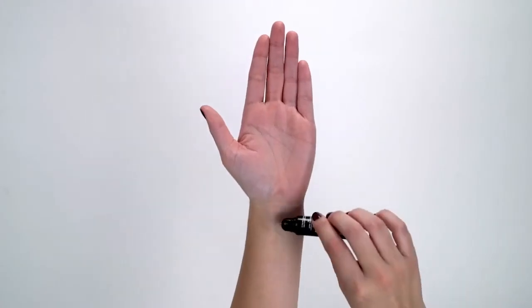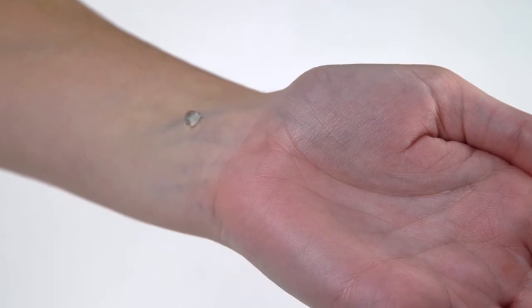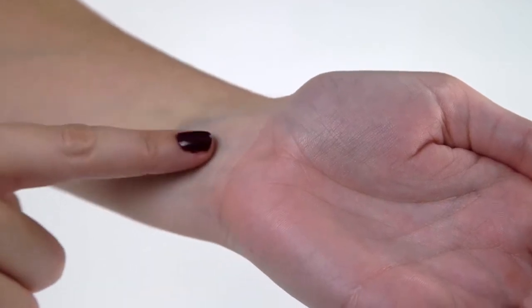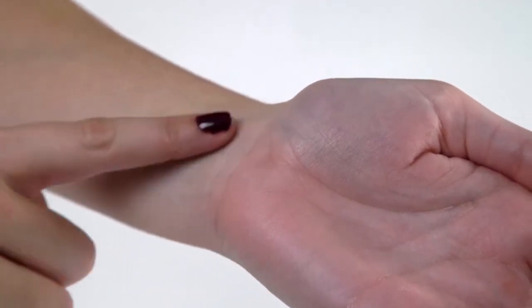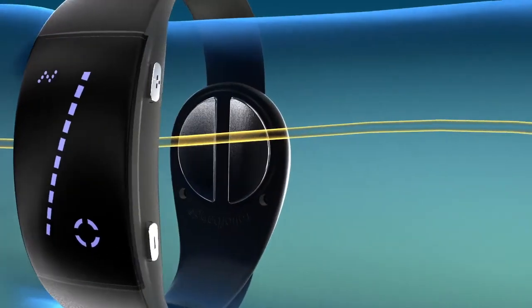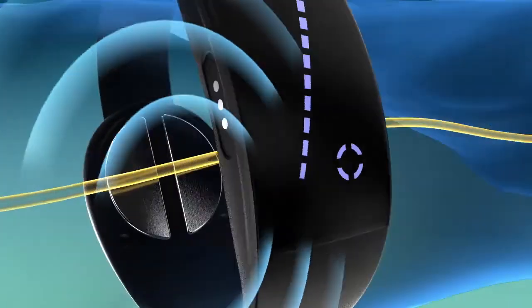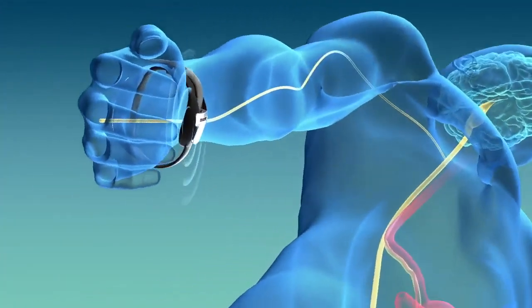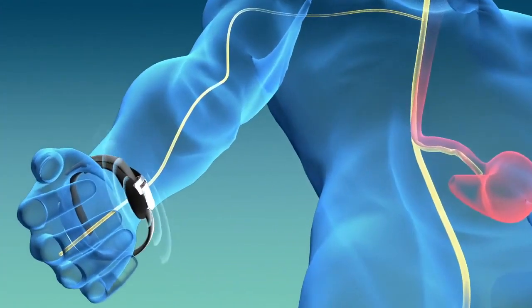Apply a small drop of conductivity gel to your wrist. Spread it in a circle roughly the size of a large coin until it creates an even sheen. This gel allows the therapy to penetrate the skin and stimulate the median nerve and also ensures the most comfortable experience.